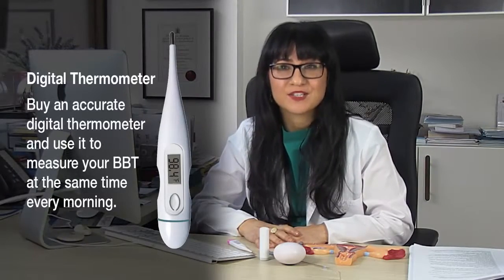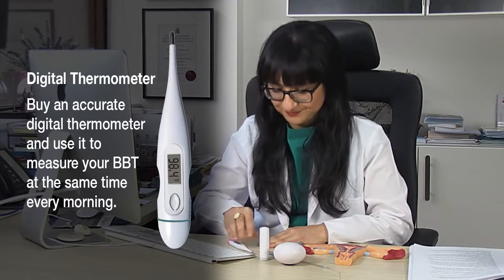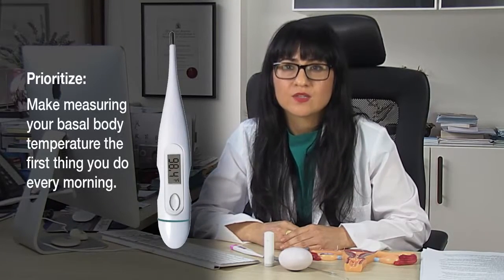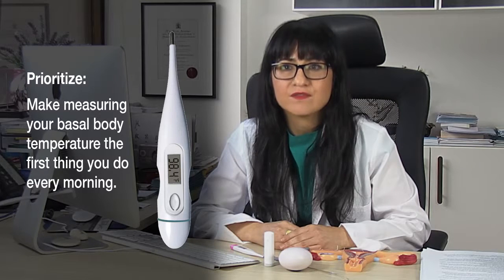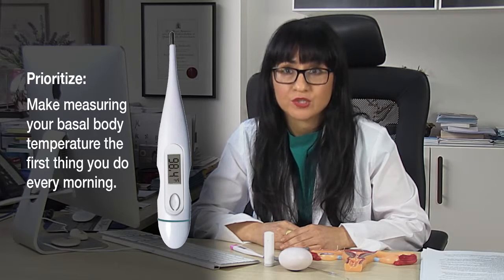The best way to measure your basal body temperature is to buy an accurate digital thermometer — here's one I prepared earlier. When you wake up in the morning, it's really important that you do nothing first but measure your body temperature. It's literally turning to the side of your bed, picking up your thermometer, and putting it in your mouth.